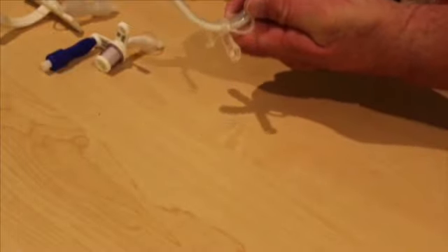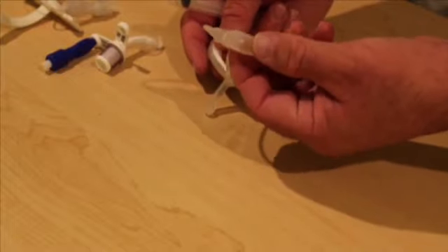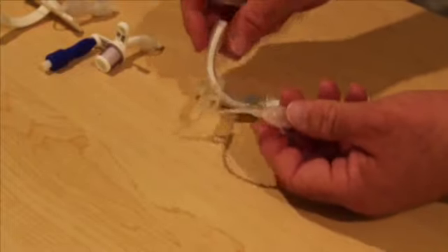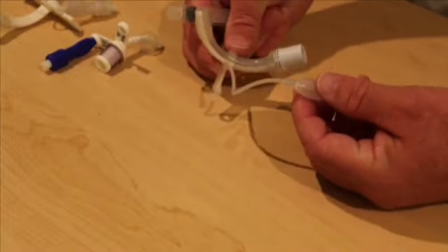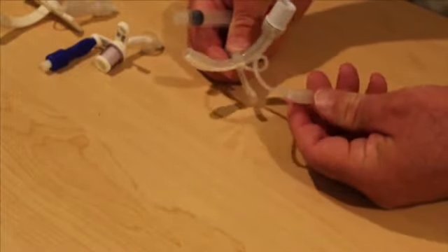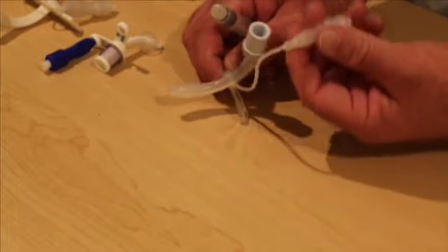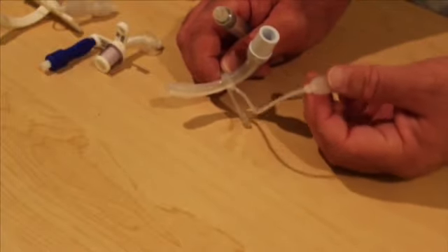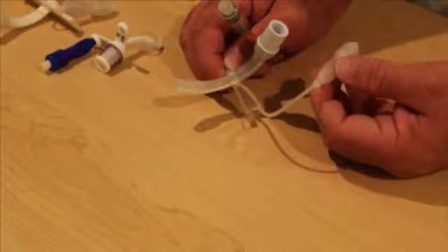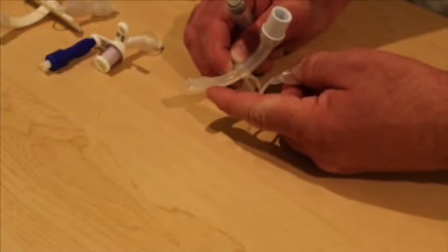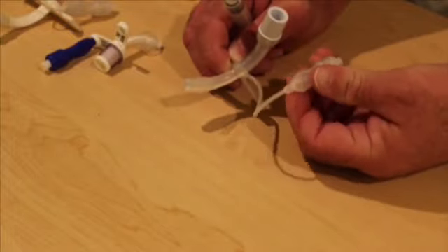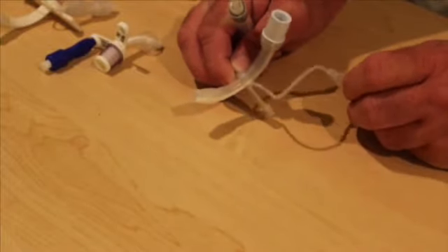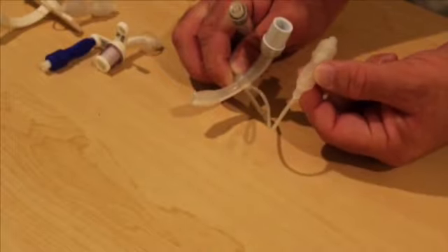But also because it's so elastic, we can't really feel how tight it is against their trachea. So we can't go by the typical techniques we use, which is the minimal occluding volume technique or the minimal leak technique. And then we usually double check how tight the cuff is or we go by how much pressure is in the cuff, which is usually about 20 centimeters of water pressure. Because usually it takes about 120 centimeters of water pressure just to inflate this. So we usually have to go by a doctor's order for how much water to inflate the TTS cuff with.